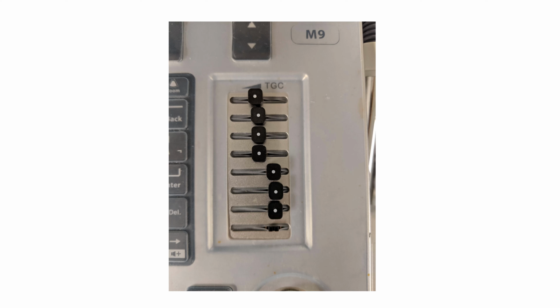But don't be afraid if you see a knob that says near gain or far gain. At least know what that is and know not to touch it if you don't want to adjust the gain in just the near field or just the far field. Just use the overall gain, which will usually be the topmost of the 3 dials on the Sonos.